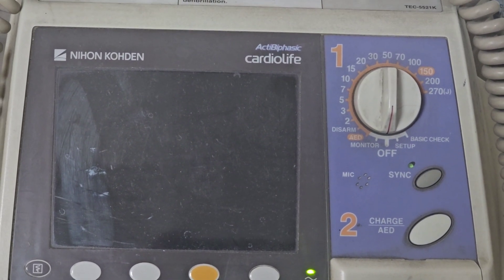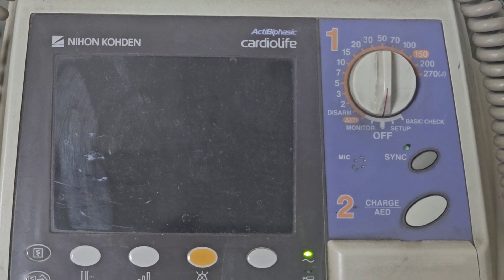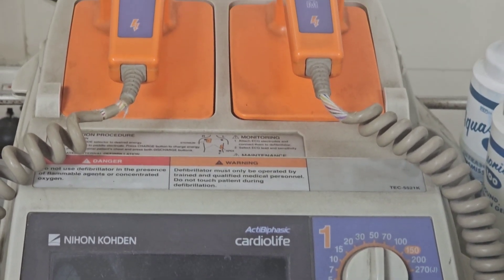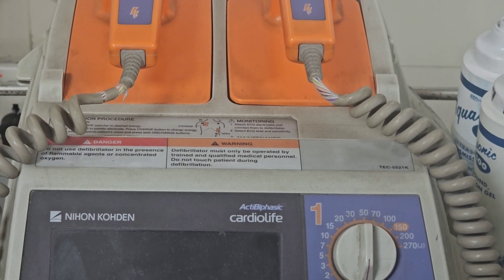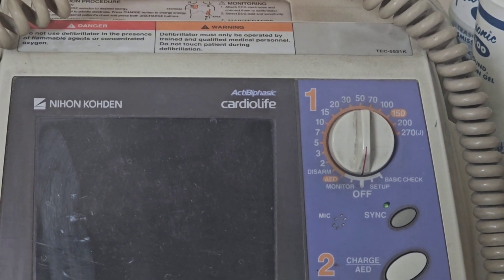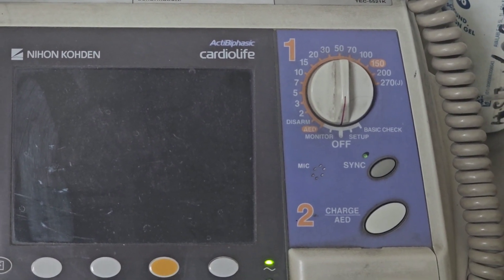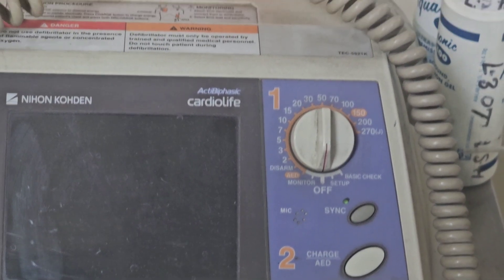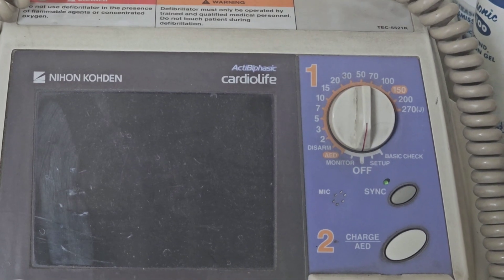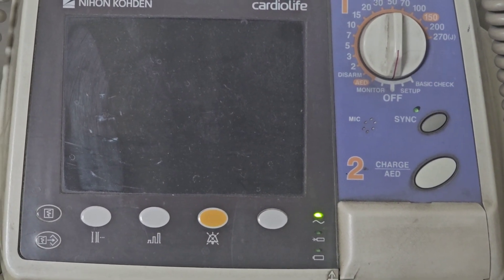Let's discuss how we use it in a cardiac arrest. When a patient is in cardiac arrest — no effective pulse or carotid pulse — we start CPR. During ongoing CPR, when we see there is a shockable rhythm, we provide the defibrillator shock, and immediately after the shock we start CPR again. In this case we use the energy level as per the manual of the defibrillator manufacturing company. If unknown, in a monophasic defibrillator use the highest setting; in a biphasic we can use 120 to 200 joules.